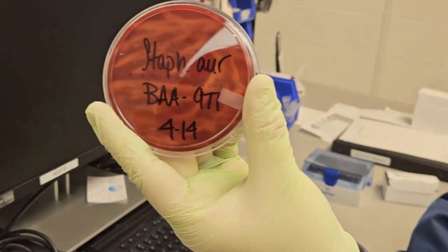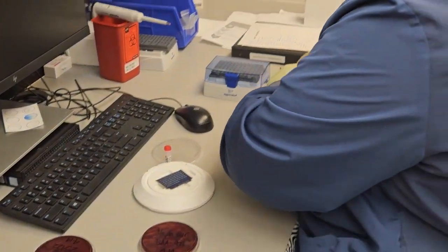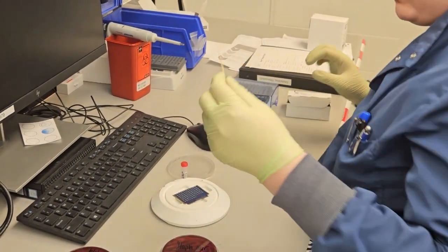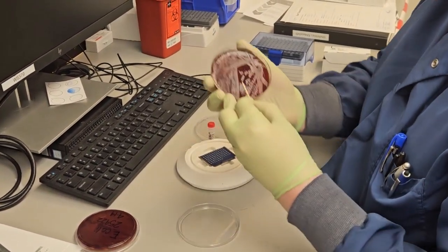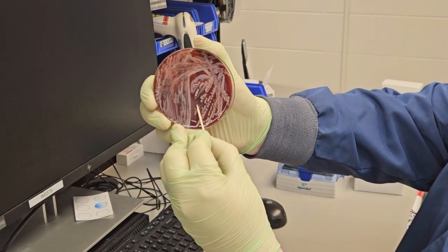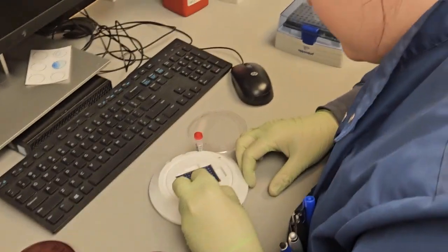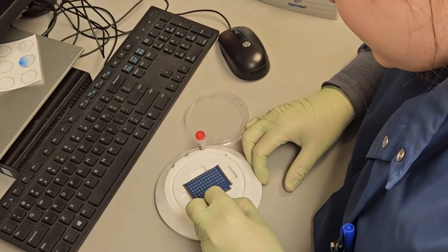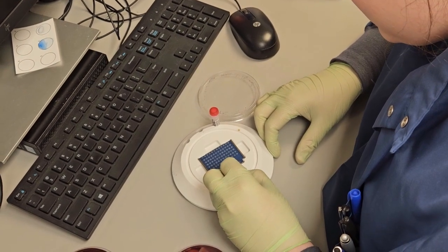Now we can watch as I apply the second QC bacteria to the target plate. I'd like to reinforce a couple of things about how to use the applicator stick. First, we want to grab a lone colony and only a small piece of it, not the full colony. And now we find the target we want to use and apply, using light to medium pressure, a full, thin, circular layer covering the whole target.